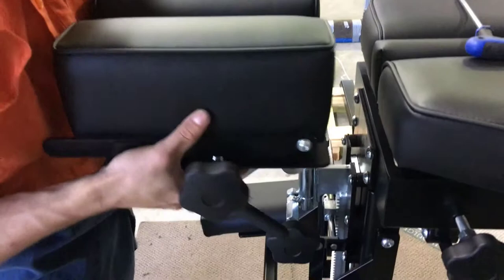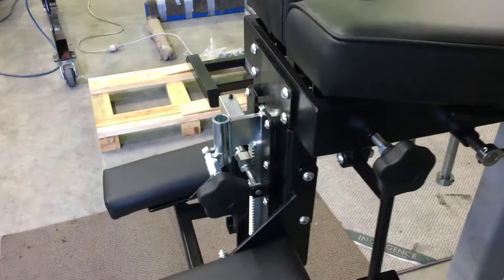The first step in replacing is to remove the headpiece. Loosen it sufficiently until it has freedom of movement and just take the headpiece out. All you're doing is removing a portion of the weight from the end of the table.